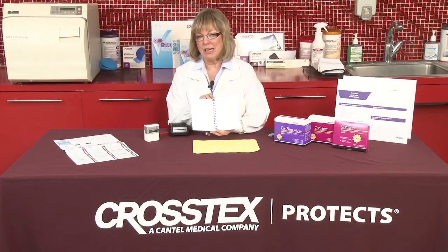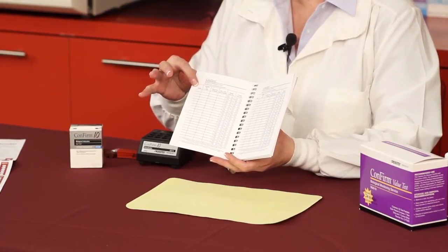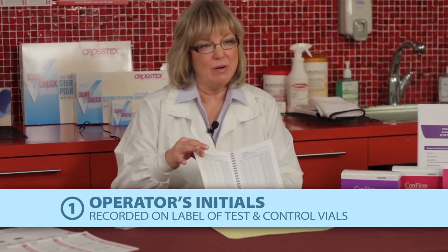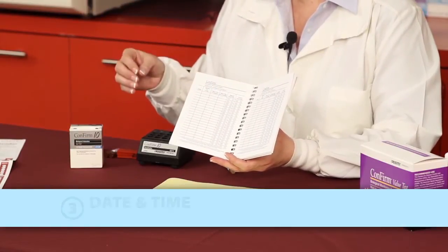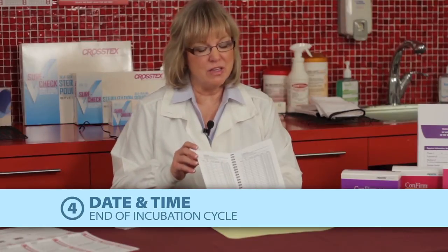It's important that you use either black or blue ink — you would not want to write into this document with pencil. The first thing it's going to want to know is the operator's initials, which you've recorded on the outside of the label on both the vial and the control. It's going to want to know the sterilizer number and type, however you've identified it in your office. The next thing would be the date and the time that you put the test and the control vial into the incubator, and the last column is the date and time that you removed the vials from the incubator.